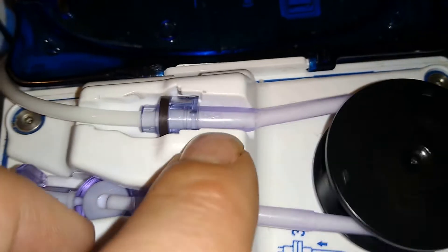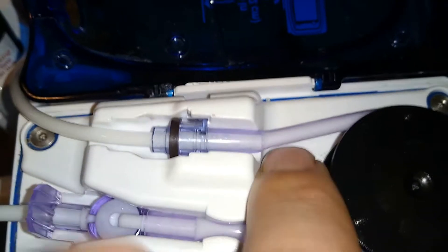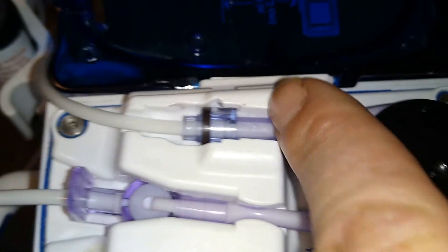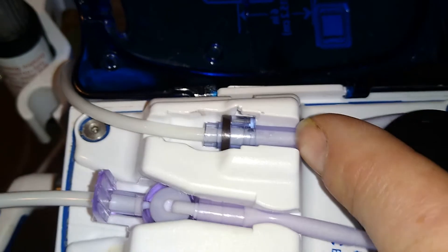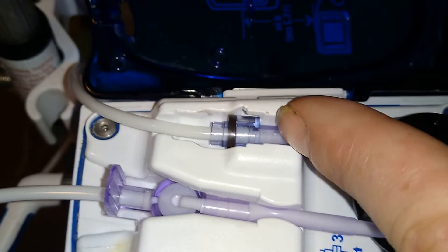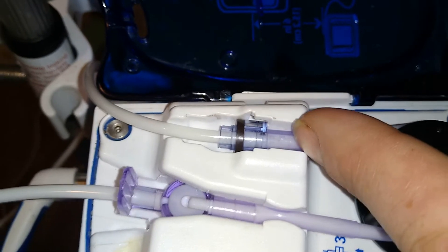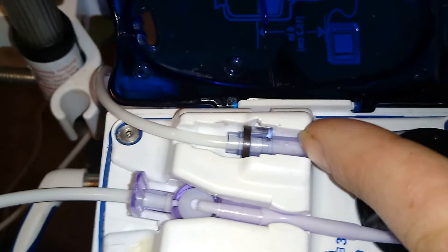And then a couple bubbles are fine, but if you're having trouble, you know, like these bubbles I guess are not affecting it.